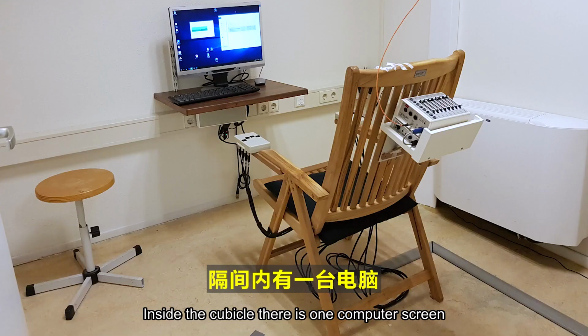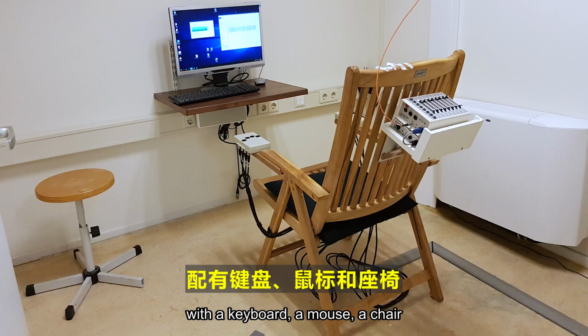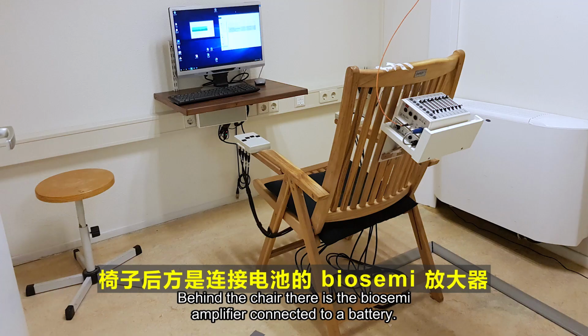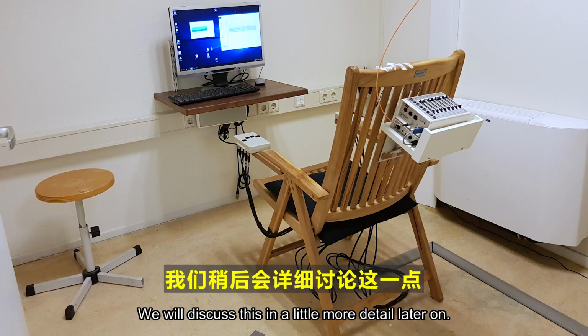Inside the cubicle there is one computer screen with a keyboard, a mouse, a chair and a small table for all the items necessary for testing and preparation. Behind the chair there is the biosemi amplifier connected to a battery. We will discuss this in a little more detail later on.